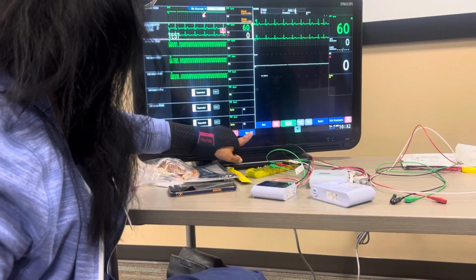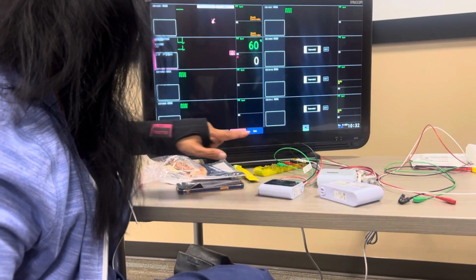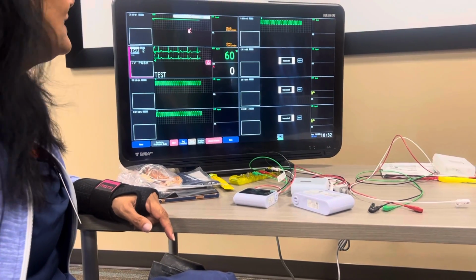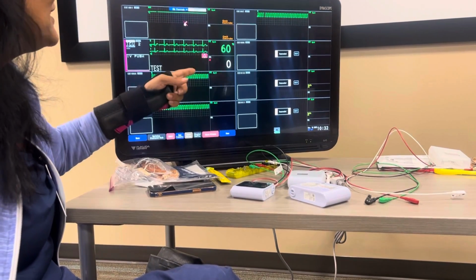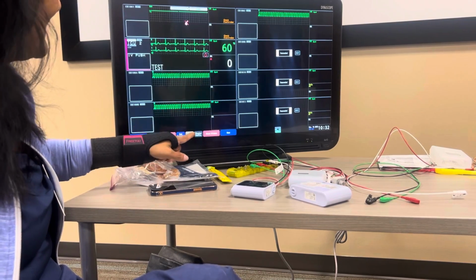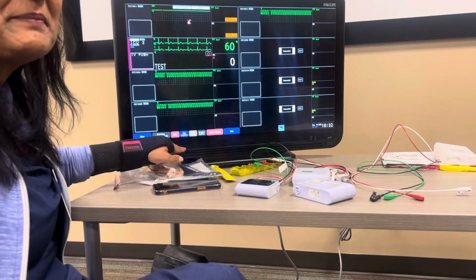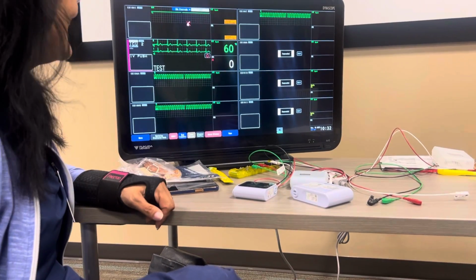We only had to tell you four times to select the patient first. Well, it's funny, the other class, all they kept saying was, select the patient, and they would laugh because then I messed them up when I said, okay, how do you do a bed transfer? And you want to do the bed transfer and not select the patient, so that was kind of funny.